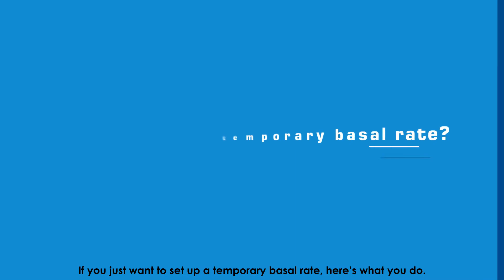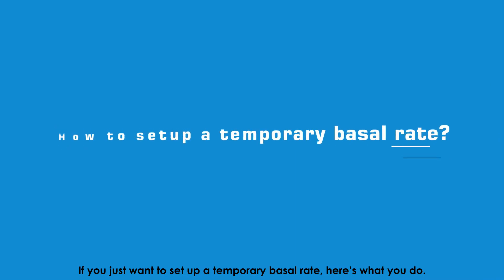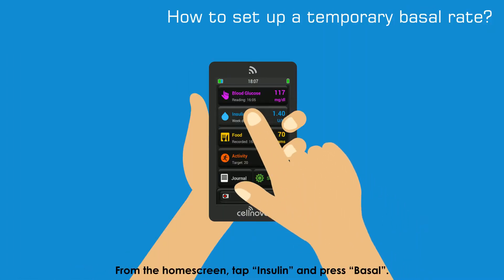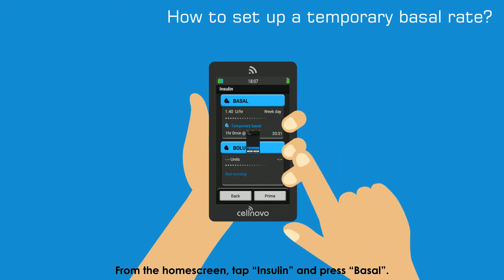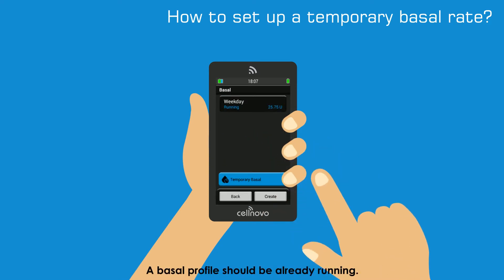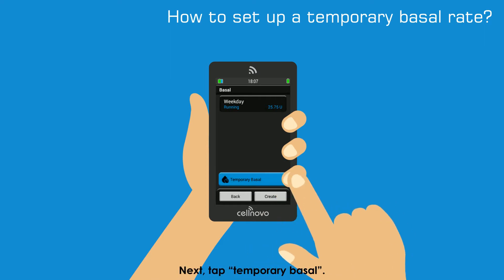If you just want to set up a temporary Basal rate, here's what you do. From the home screen, tap Insulin and press Basal. A Basal profile should be already running. Next, tap Temporary Basal.